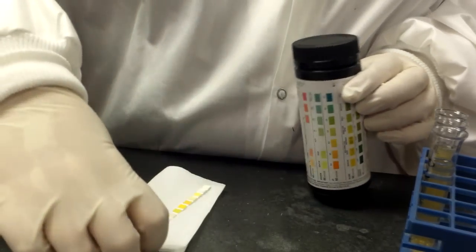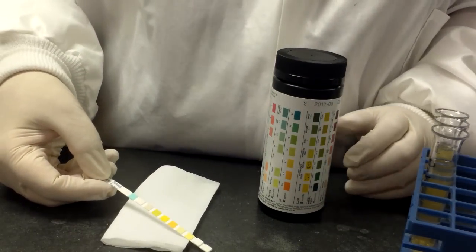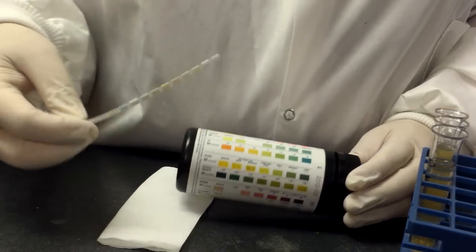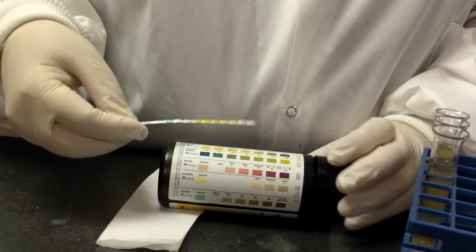But somebody put a lot of thought and effort into how to make this work. So after we dip it, we're going to read against the color chart.